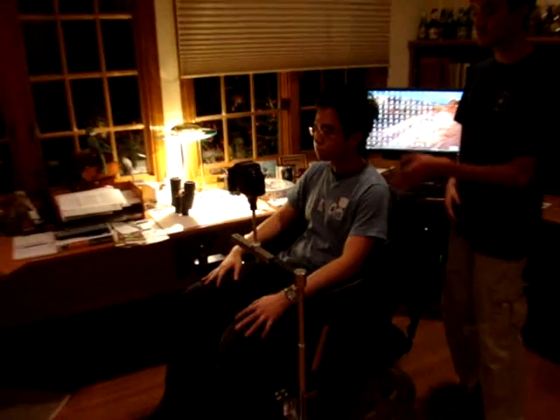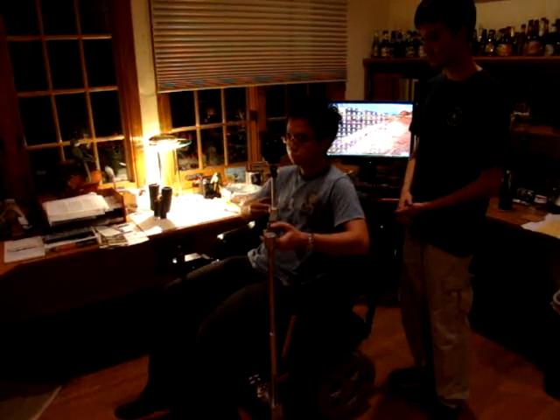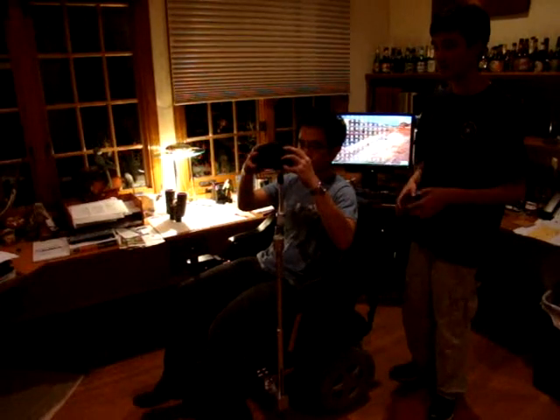Our user has selected the camera to use. As you can see, it sits halfway up along the bar. Akai, you could bring it up to your viewing position, please. The camera sits about eight inches from the user's face so that they can use the LCD. In addition, you have tilt, pan, and rotation of the camera, so you can capture anything that is off to the side or at an angle.